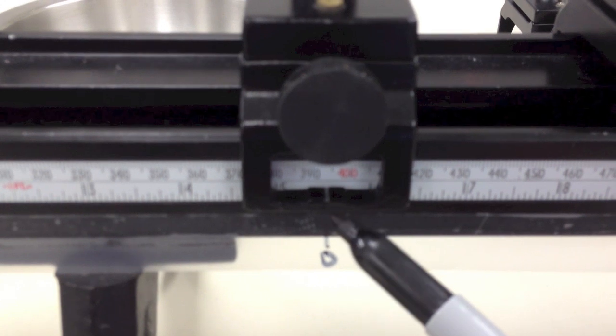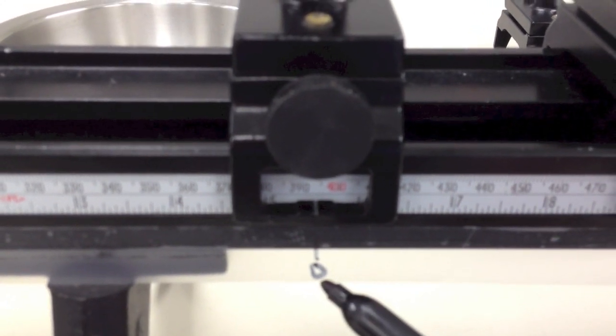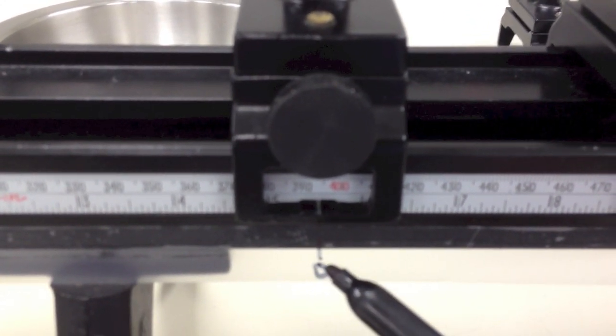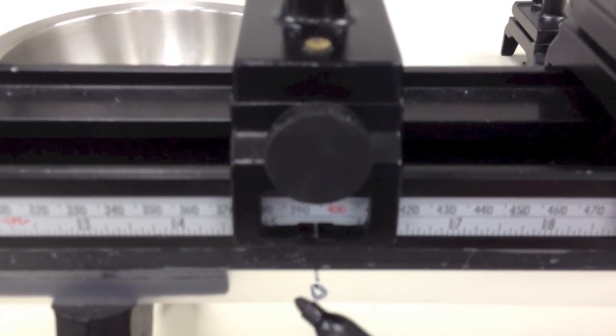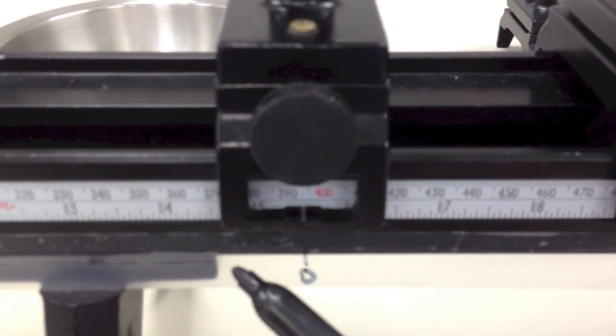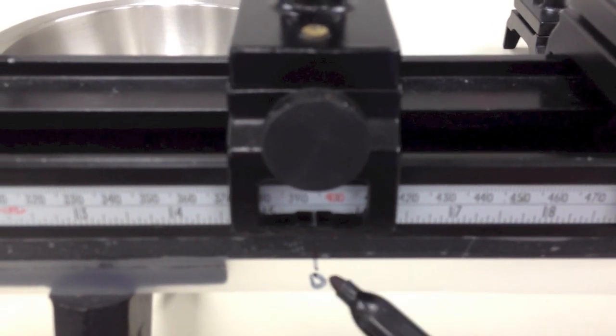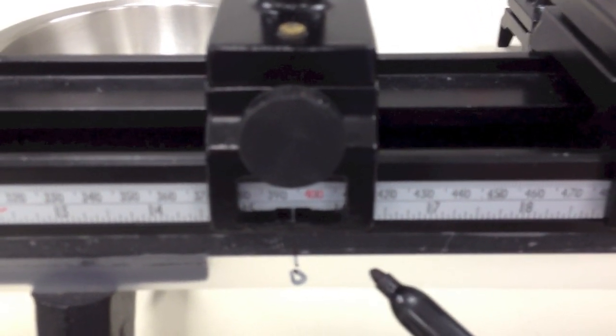Now that I have my eyepiece focused, I'm going to go over here to the bench and make a mark on the bench to indicate where my zero point is for the lensometer. So I make a zero there, and that means if the target is positioned here, then I've got a plano-powered unknown lens. Anywhere over to the left of this is where I would have the target for measuring minus powers. Anywhere to the right of this is where I need the target to measure plus powers.